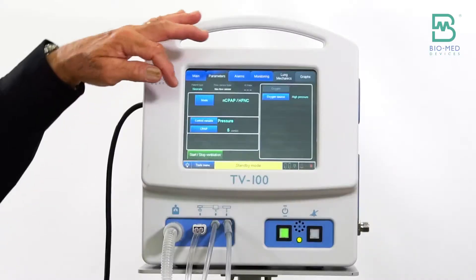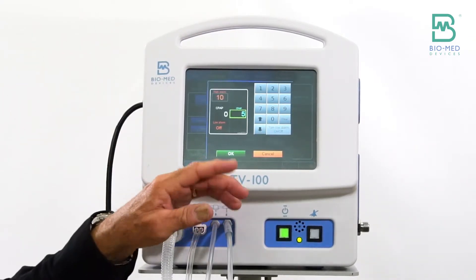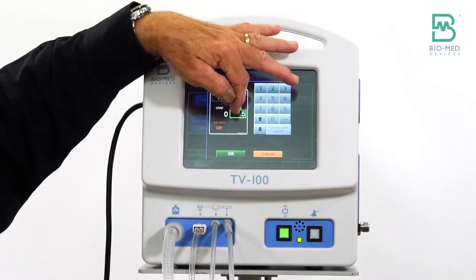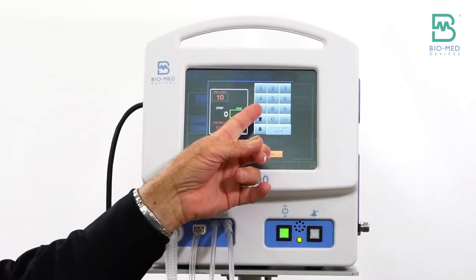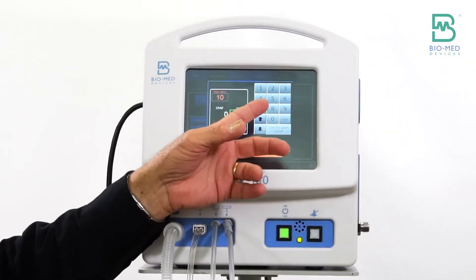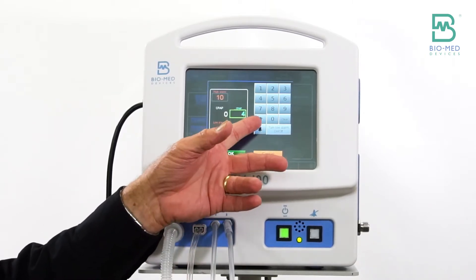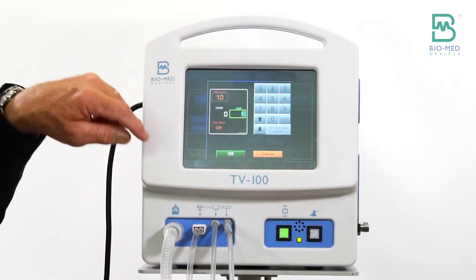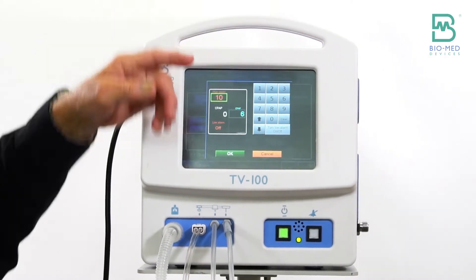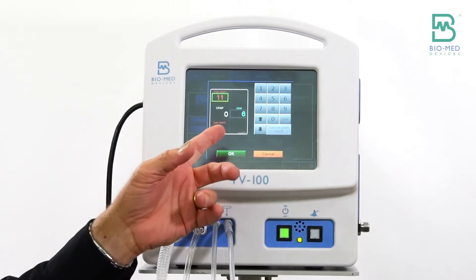If I chose a CPAP pressure of six — there are a couple of ways to do this. Five is entered right now; I can take the arrow up to six, or I can clear it and enter six directly using the up or down arrows. When I get to where I want, I just choose okay. While I'm here, I can also go ahead and check and change my alarm parameters.